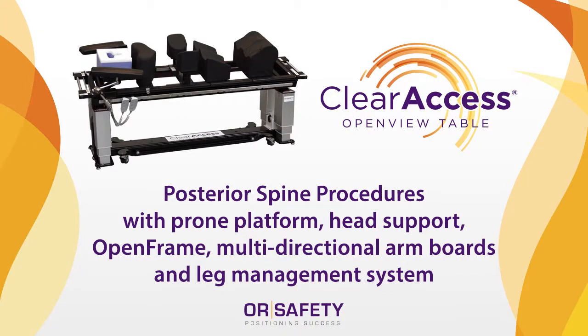This video includes an overview of the entire new standard package and detailed setup instruction for the ClearAccess table base, prone platform or open top, open frame or four poster style frame, multi-directional arm boards, thigh pad, ankle rest, and the optional leg sling.